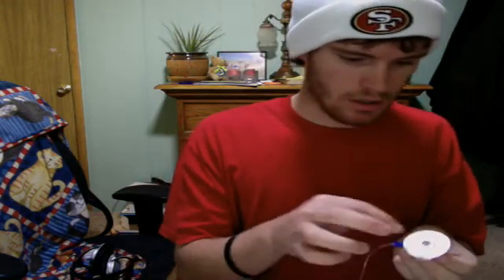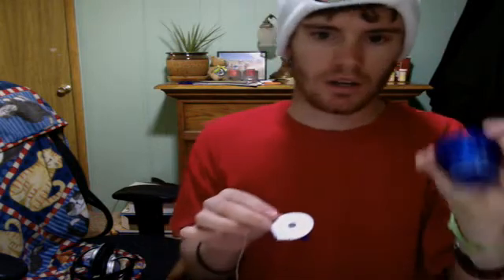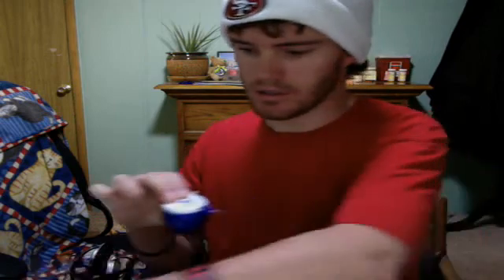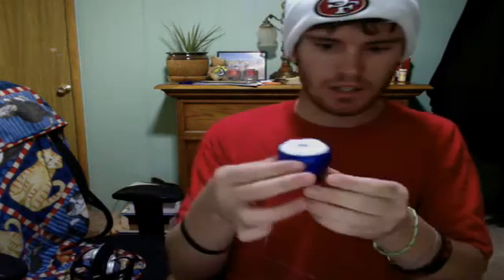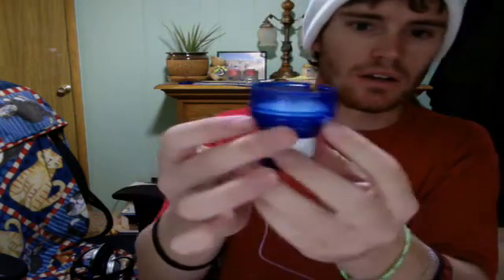Give it a little shake, a little tingle there. Gonna make sure it's not tangled up. Last step — you use this inserter device; I can't remember what it's called, but you put that in there like that, take the little covers off the tape, give it a little push down, and you have the little side pieces there. Once you're ready, it's in place — push that and you're ready to go.